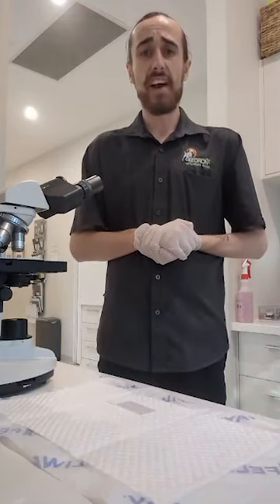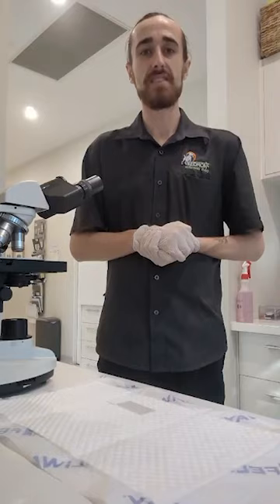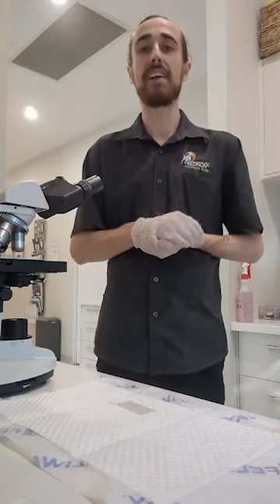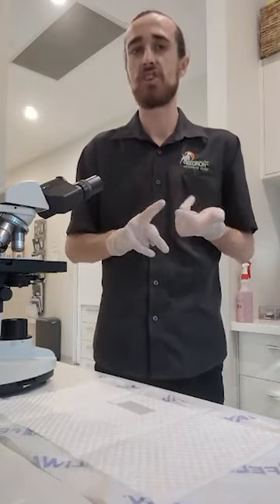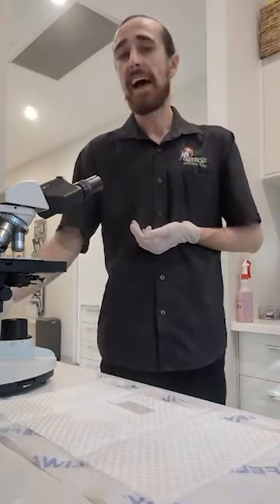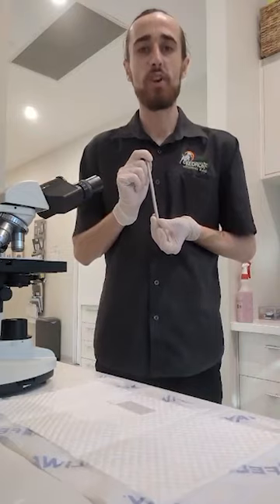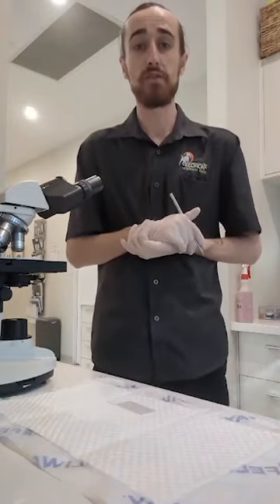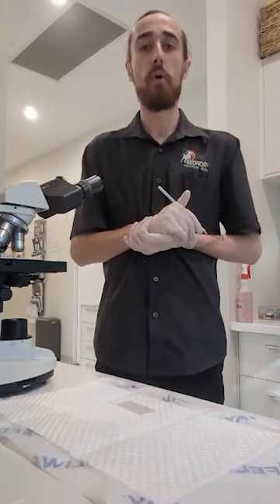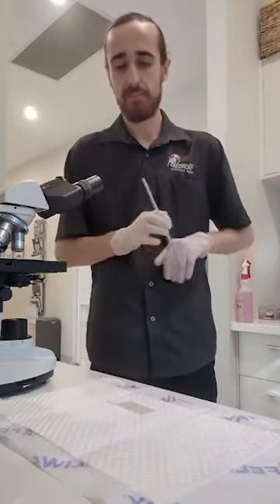Before starting any diagnostic test, we must ensure that we are correctly labeling the microscope slide with the correct patient details, including the first and last name of the patient and the date that we are running the diagnostic test. As per clinic policy, we use a pencil to label. I understand this is not gold standard and we should be using a felt tip permanent marker or pen for more permanency. However, this is what my clinic recommends.